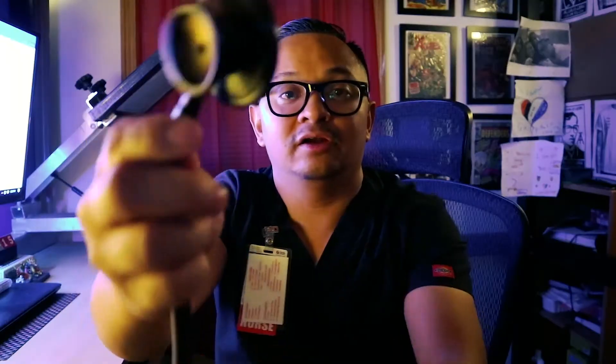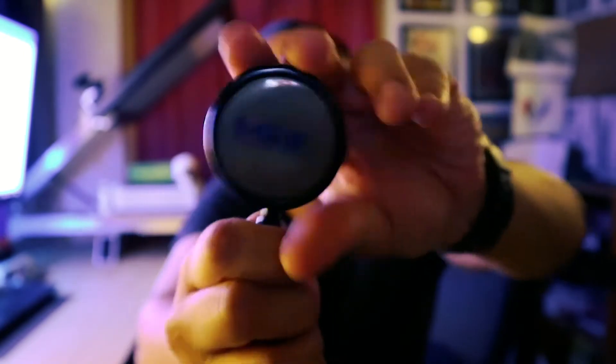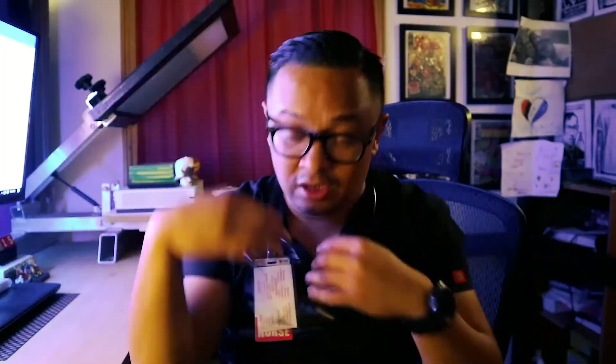When it comes to ear tips, they're a soft silicone, which is super dope. And it's a dual head. That's my stethoscope, and I've stuck with mine — if it's not broken, why fix it?